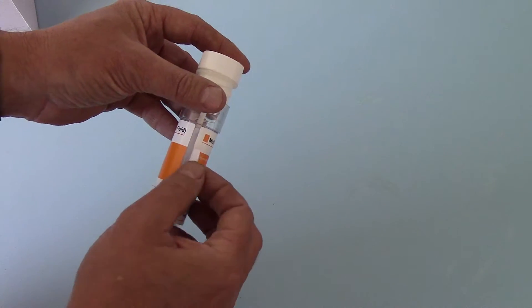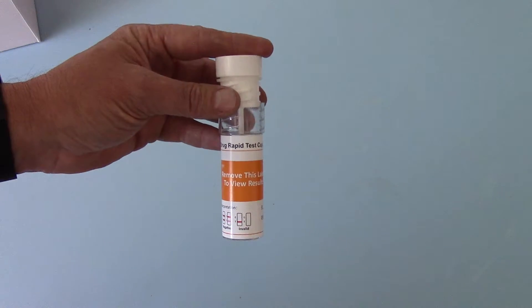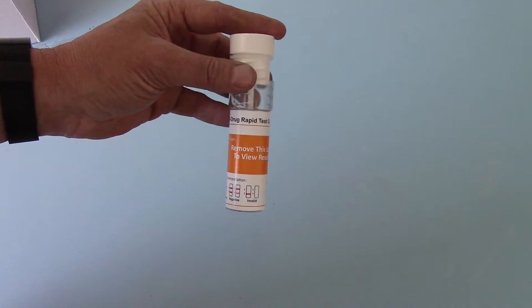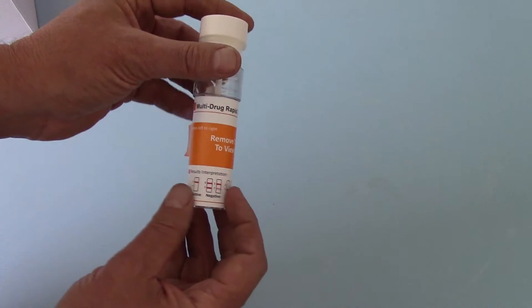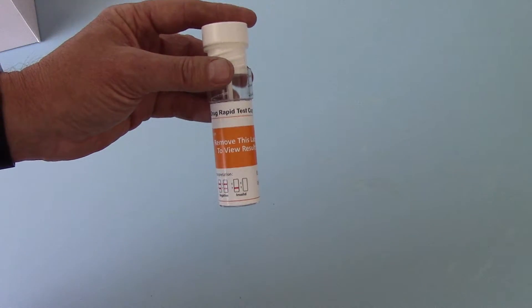The results window is under this sticker. So if you don't want the person that you're testing to be able to look at the results while you're running this test, they can be removed from the room and then the results window removed at a later stage.